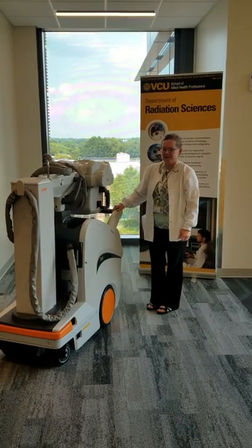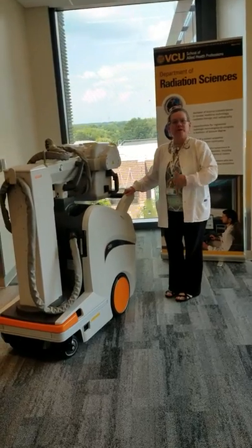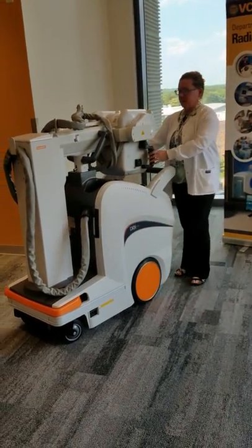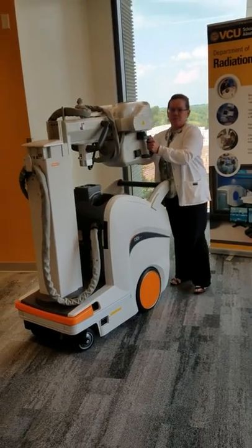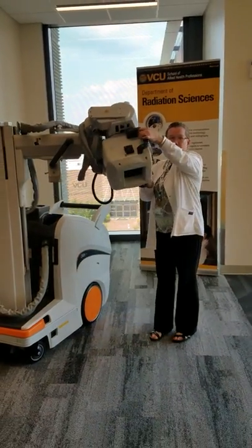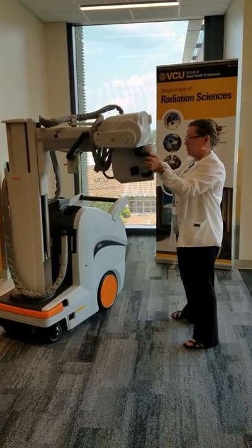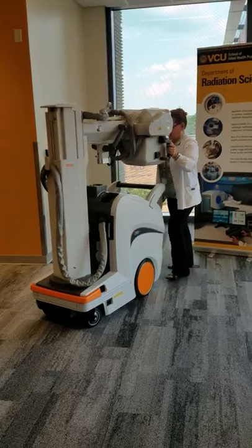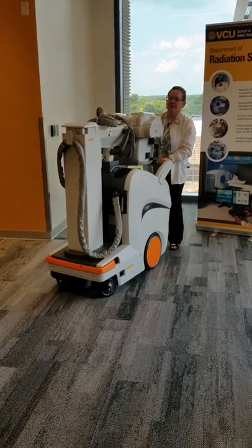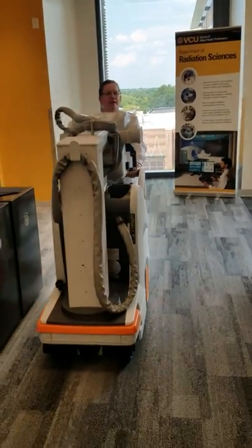This is our portable machine. If the patient cannot come down to x-ray, then we can go to them. We can use this portable machine in various positions in patient rooms — the arm moves all the way around so we can position it wherever we need to in order to take our image.